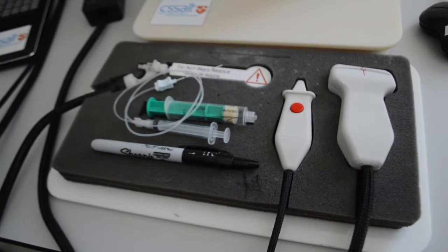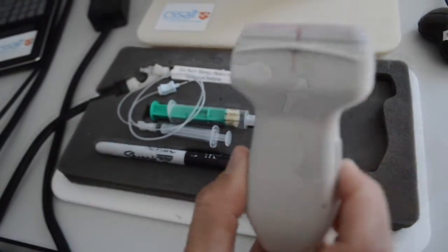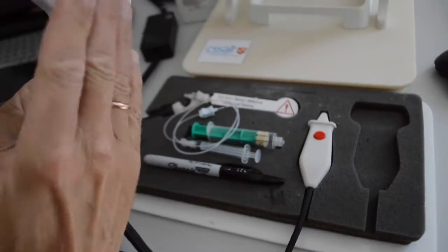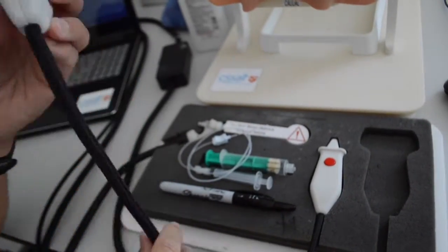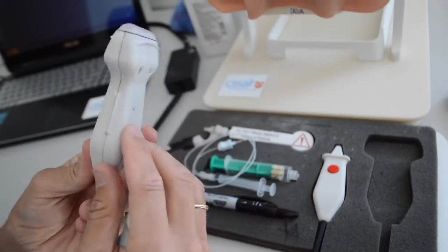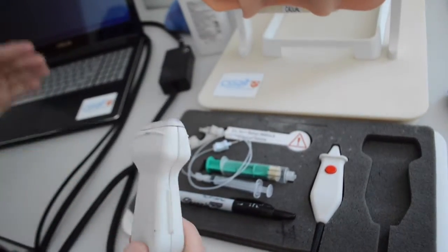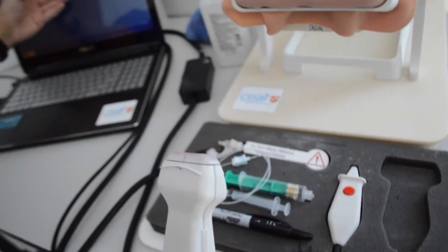You will use the tools in front of the simulator to assist you when performing the blocks. The first tool is the ultrasound. This is not a real ultrasound, but it is more so a mixed reality ultrasound. On the ultrasound, there is an orientation marker, and the computer screen represents the ultrasound screen.